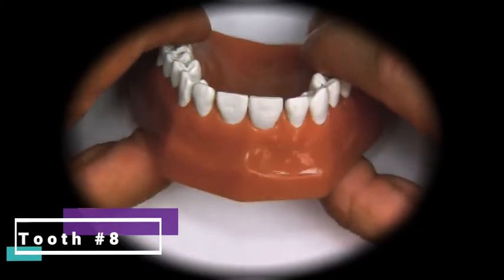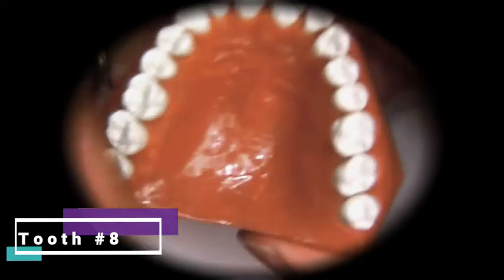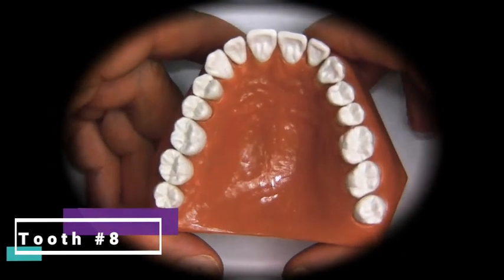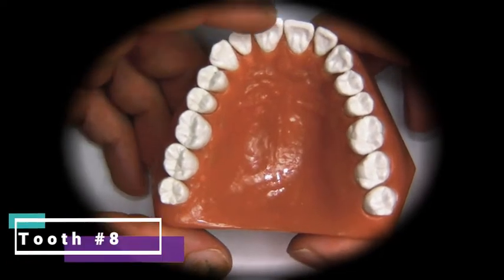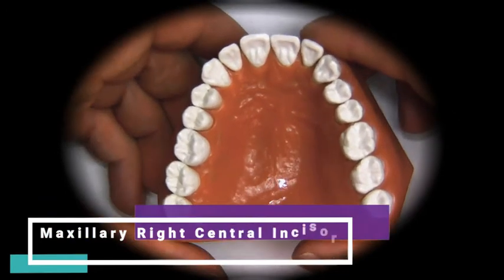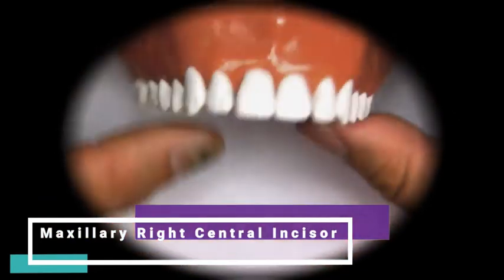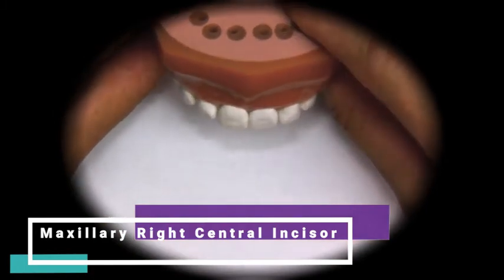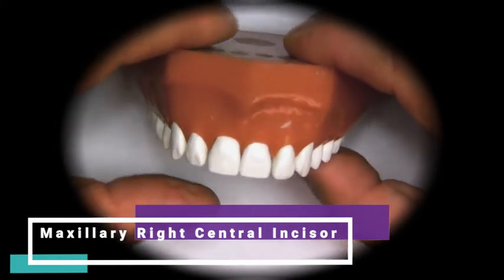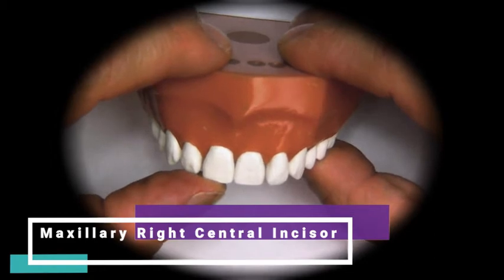The first tooth we're going to wax is tooth number eight. If we look at it from the occlusal surface, tooth number eight is the maxillary right central incisor. If we look at it from the facial view, we're going to see that number eight is on our left side.